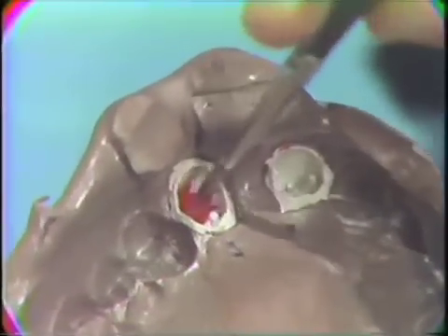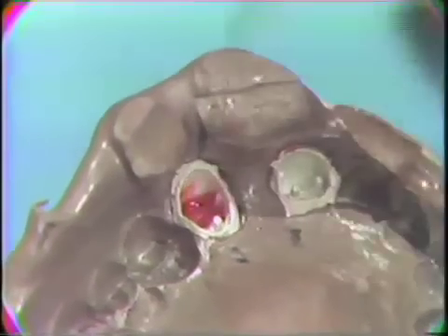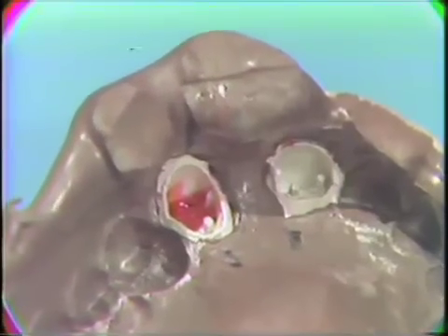Should a small bubble remain, the silver die could collapse when you are fabricating the wax pattern or the gold casting. Small increments are added a bit at a time until the entire silver shell is filled with Duralay.